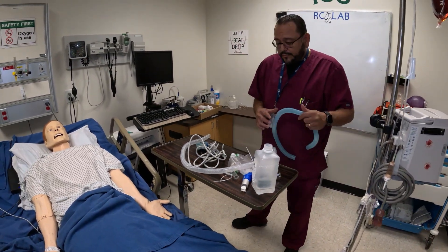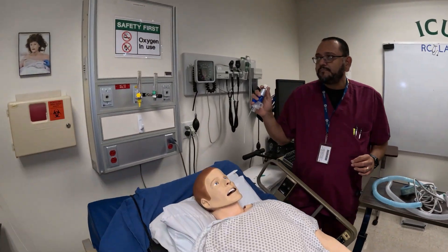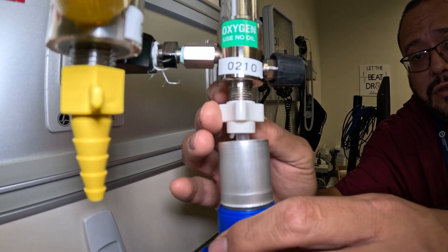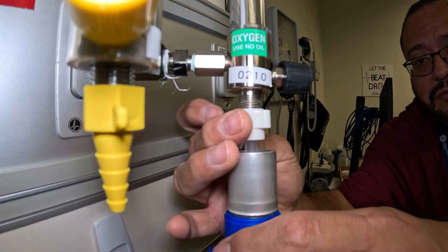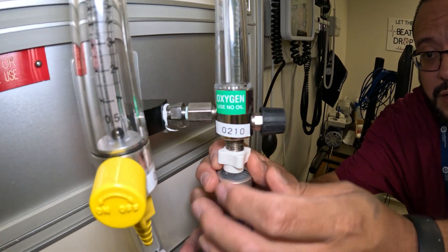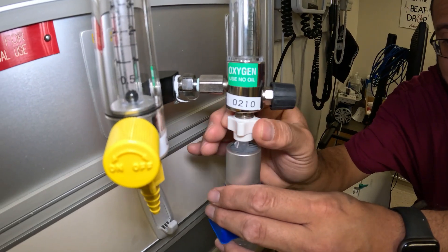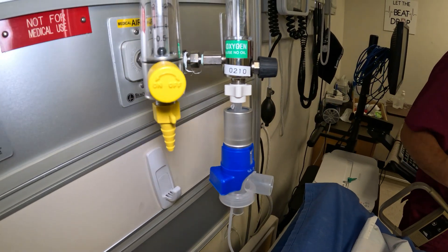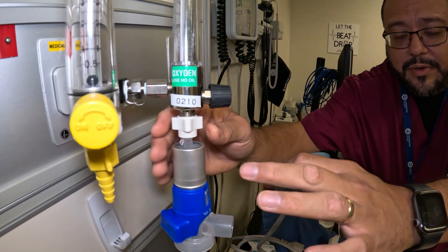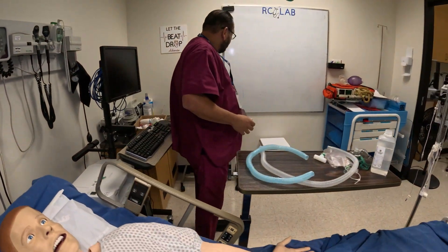For demonstration purposes I have it already ready. Now I'll put this onto the flow meter. This is plastic, so you don't want to force anything — if you force it you will strip the threads. When you place this on, it should be an easy fit. If it's giving you trouble, sometimes you can take the flow meter off and try again, or you may need to get a new one because it may be stripped. The donut goes on first, being mindful that it gets hot, and then you attach the assembly.